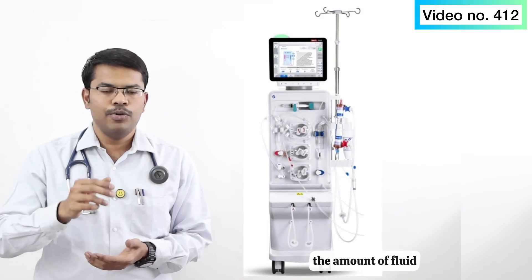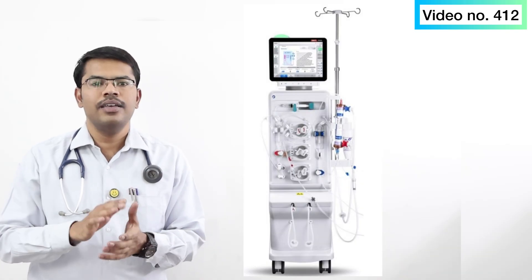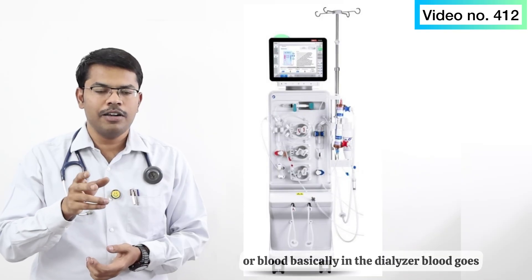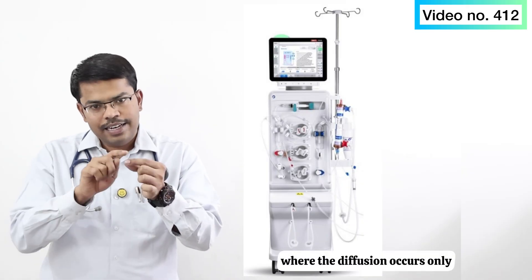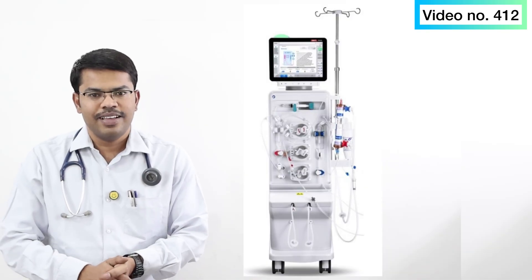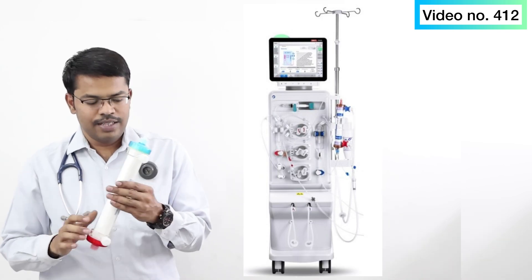Simply put, the amount of fluid that can be accommodated in the blood compartment of the dialyzer is called total cell volume. The amount of blood in the dialyzer where diffusion actually occurs — only that part — is called the fiber bundle volume.